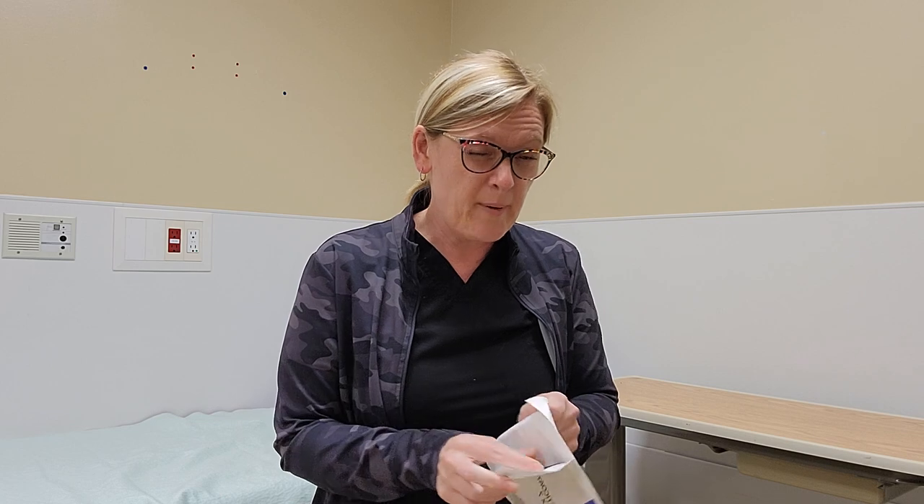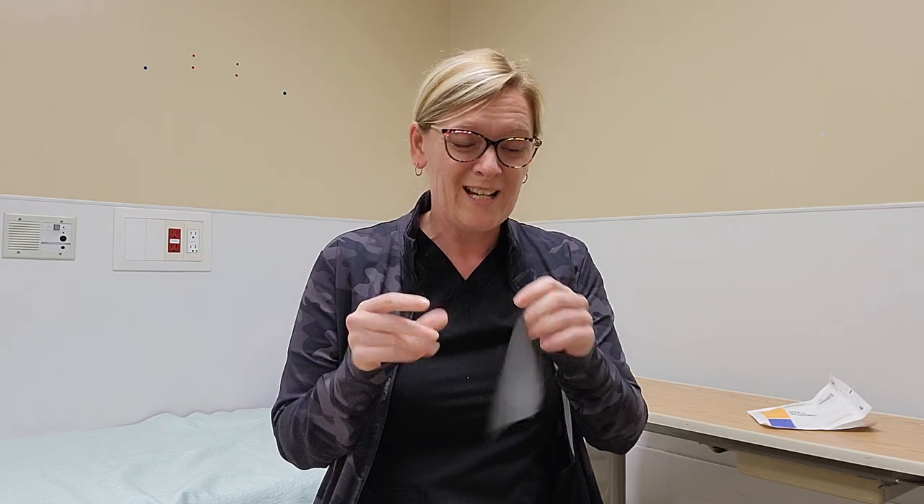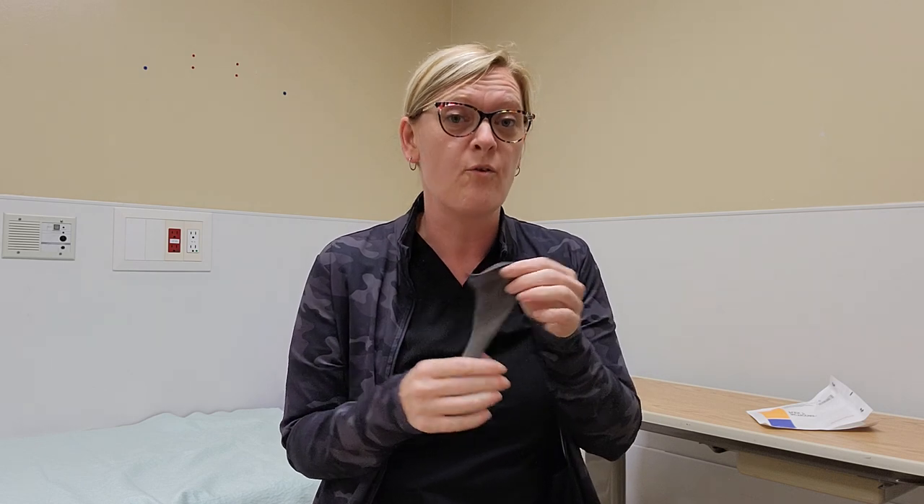It is, as I said, a big gun. It has 110 micrograms of silver that deposits into a wound. It kind of burns a little bit when you touch it, but I opened it because I want to show you how extremely tough this stuff is. So this is actually a great option for packing.